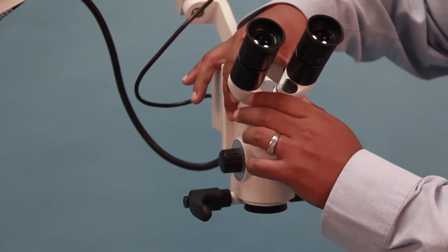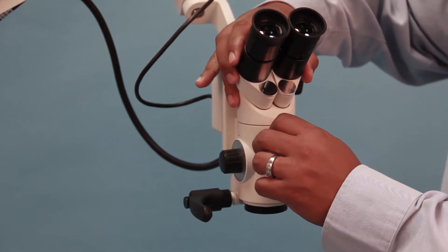Loosen the front set screw below the binocular headpiece and carefully remove the binocular headpiece.